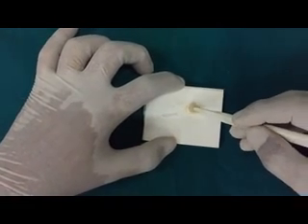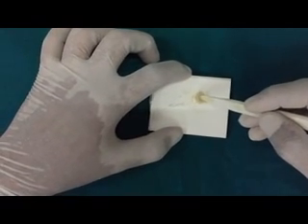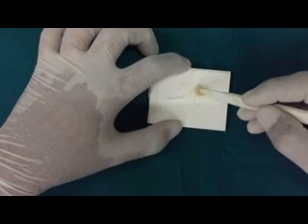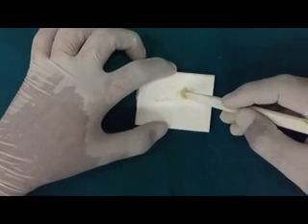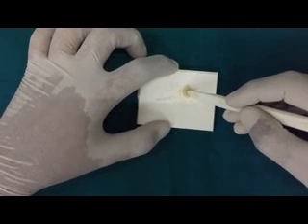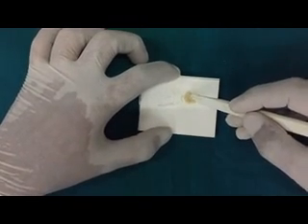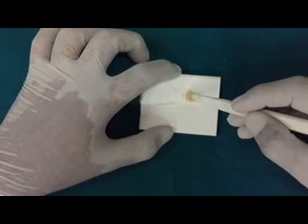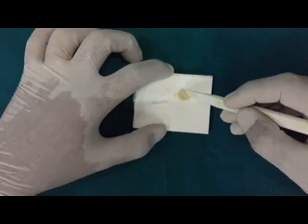So the important aspect of conventional glass ionomer cement is that it has to be mixed in the right proportions and placed into the cavity at the time when it is glossy. It should be protected with a water impermeable membrane like vaseline and finishing and polishing done only after the first 24 hours.